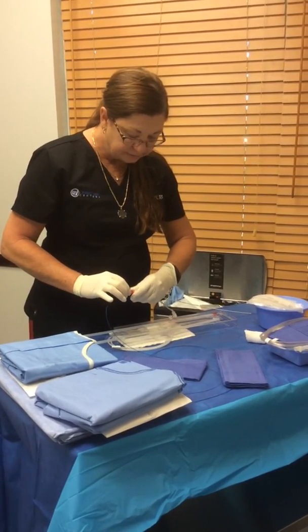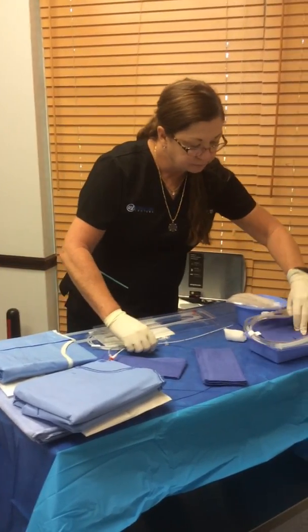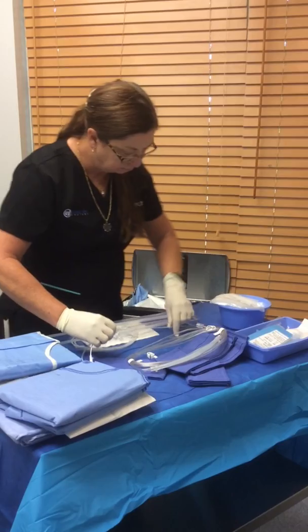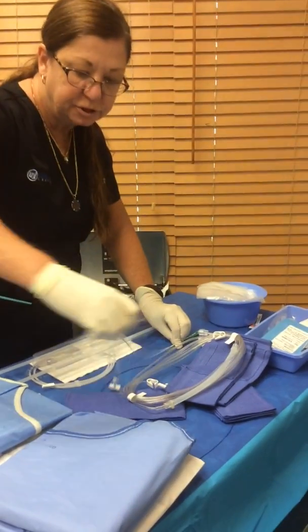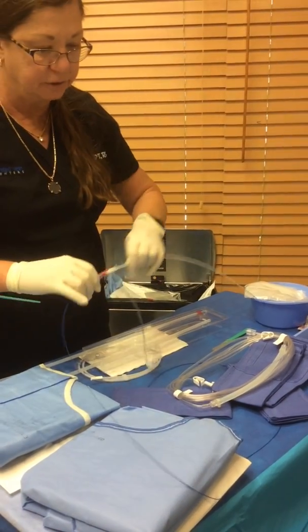Make sure this is tied on there. Do about two centimeters, tighten it down, and measure. If you need to adjust it, just pull back, tighten it down — it's locked and good to go.